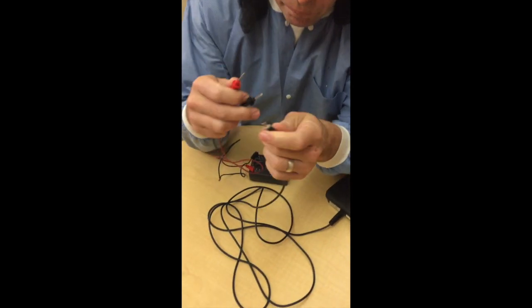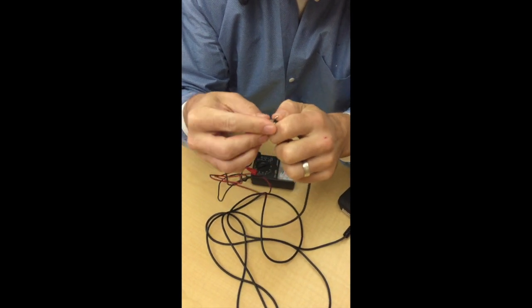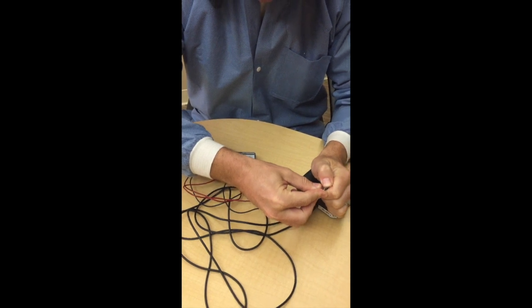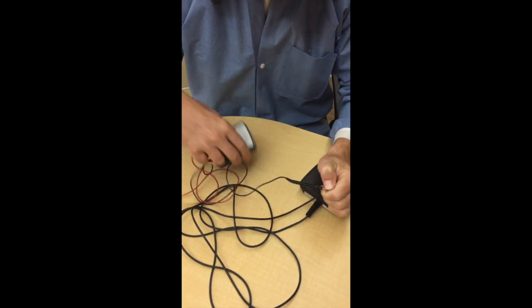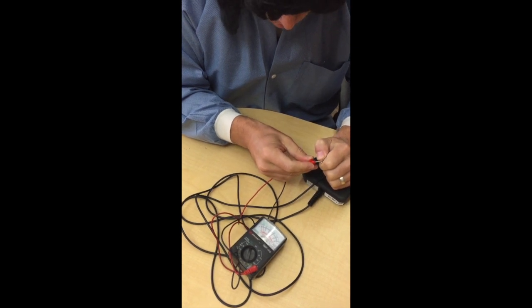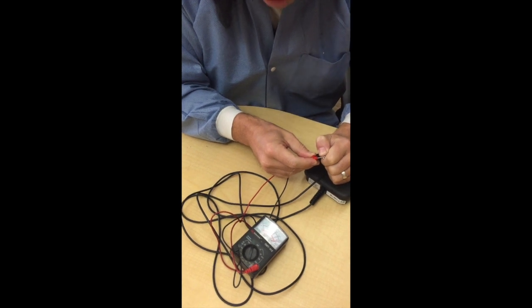So you get the plug, then you put one of the conductors on each of your voltmeter leads, and then you just push it down. The first one, it should go a little bit, and when you push it all the way down, it should complete the circuit all the way. This foot switch is working how it should.